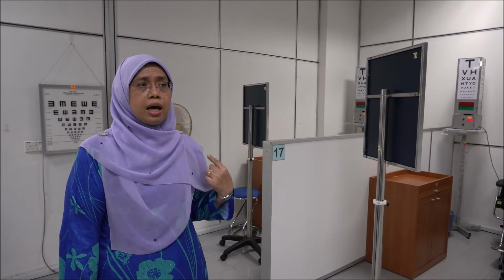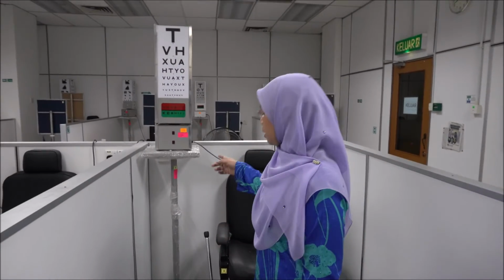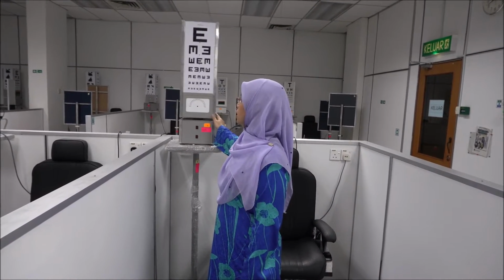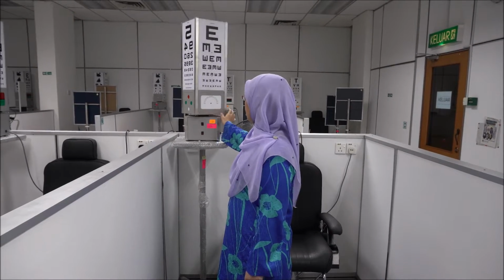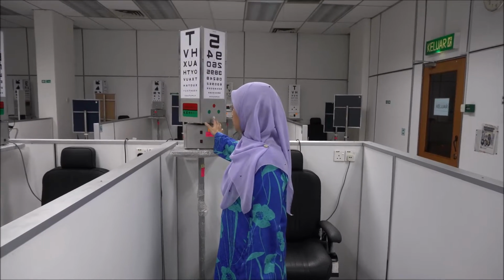In this lab you see a lot of cubicles or workstations where you will be working in pairs or with one of your friends, and you will see a lot of other equipments as well, but I'm going to demonstrate to you equipment that is available in one of the cubicles which you will use in your optics or visual optics lab. This is the Snellen box where you can see the Snellen chart here, various kinds of Snellen chart. You also can see the duochrome chart beneath the Snellen chart, as well as the fan chart, for you to use for the subjective refraction.